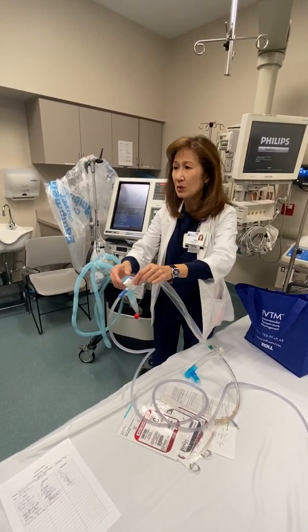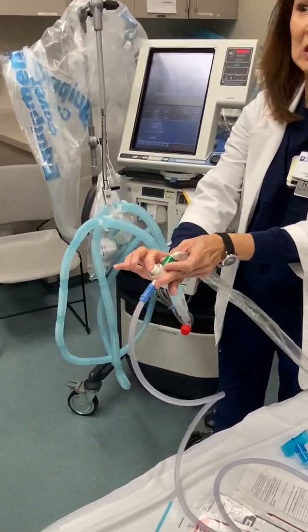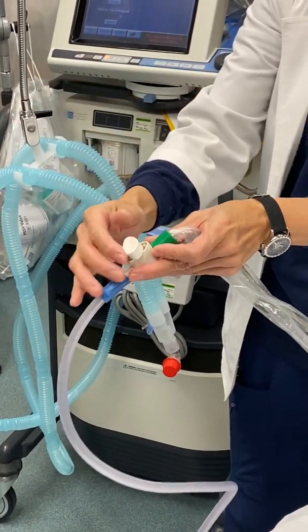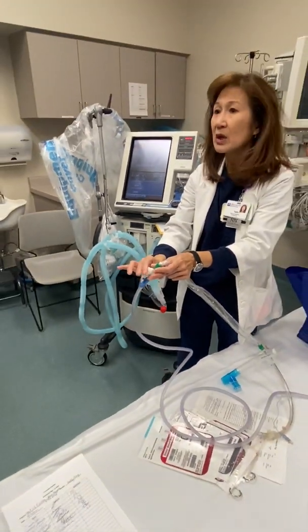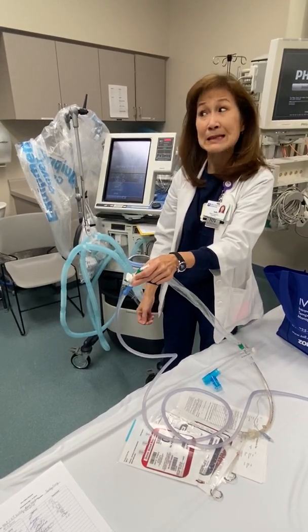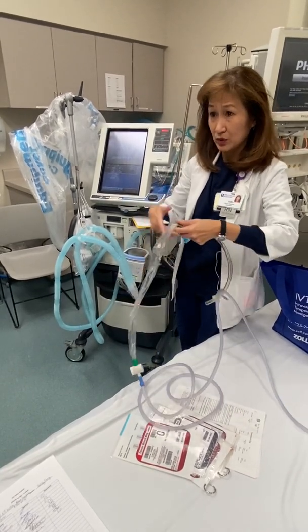Once in a while, you will have some people lift this thing and turn like this. That means it's locked. You cannot apply suction. So as a good practice, you don't need to. Just leave it like that. So anytime you need to do an urgent suction, there's always suction. So try not to lift it up like this because you might need it in an immediate urgent situation. All right? So that's how you do your suction.